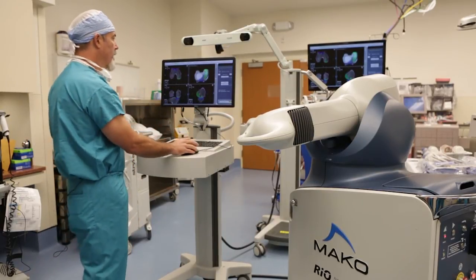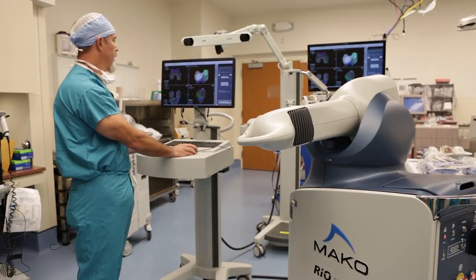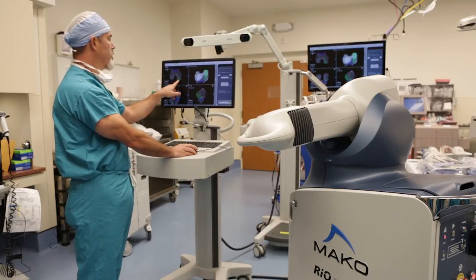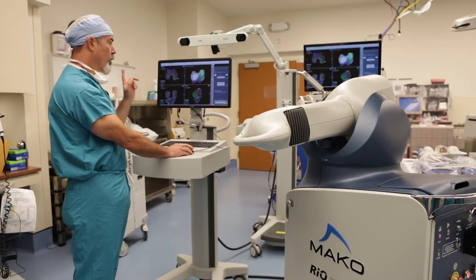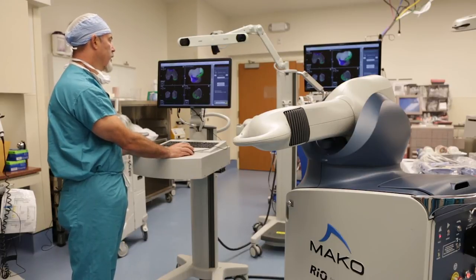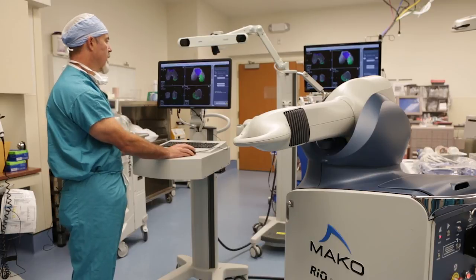The femoral component is a little bit medial, so I adjust it. Looking at this three-dimensional model from above and working in another panel, I make some adjustments — squeezing the femoral component into the notch a little bit and moving it closer over the tibial tray. When I finish, I deselect the tibia and just look at the femur to make sure I haven't placed it somewhere I didn't want. It's still flush with the condyle and exactly how I want it.